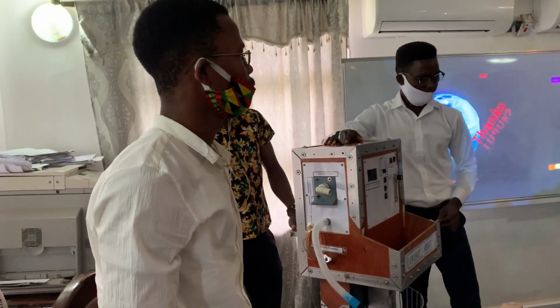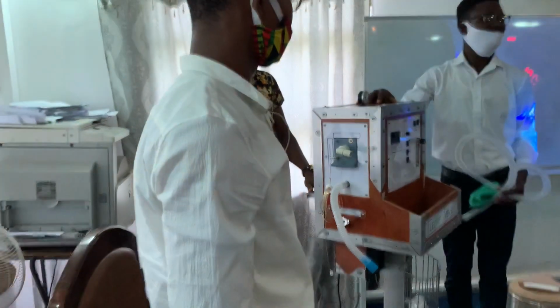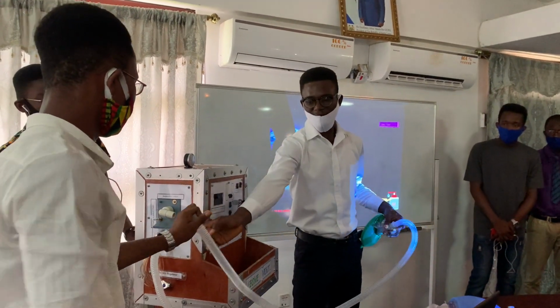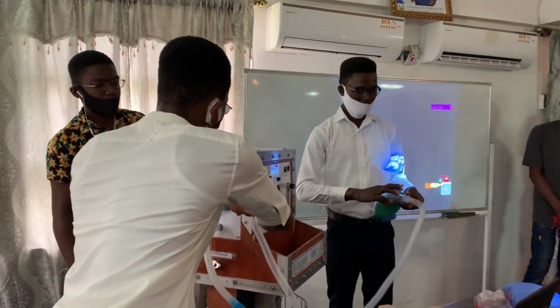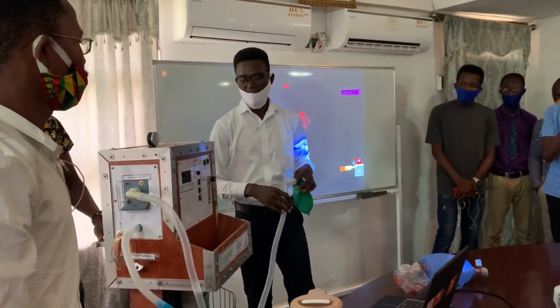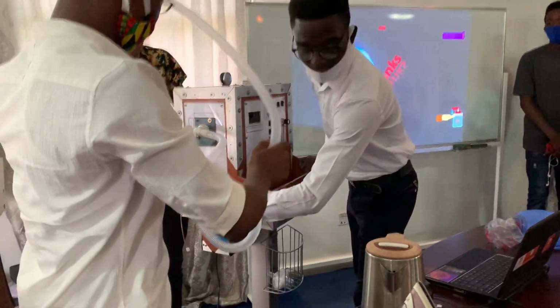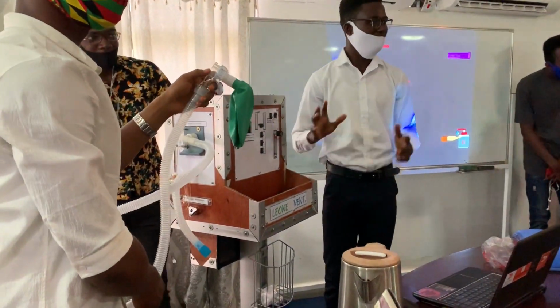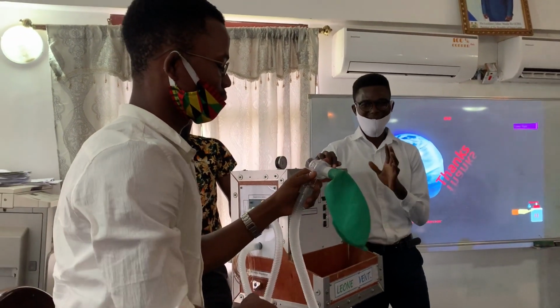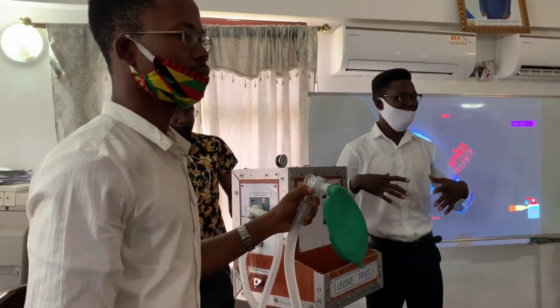Okay. Now, whilst Leone vent is booting all its internal systems, you can connect the patient circuits to the outlets from Leone vent. The patient circuit here is with a lung. We are using this balloon as a lung. Yes, this is a medical apparatus. Actually, it's not just any kind of balloon. It's calibrated already. It exerts the same pressure as the human lung exhales.